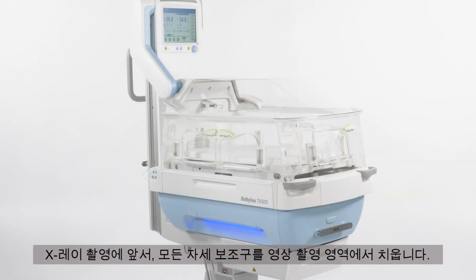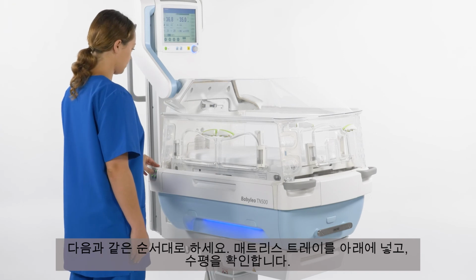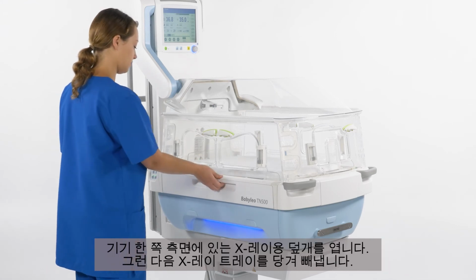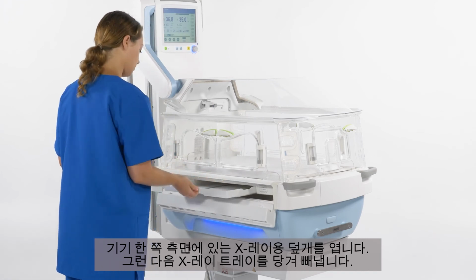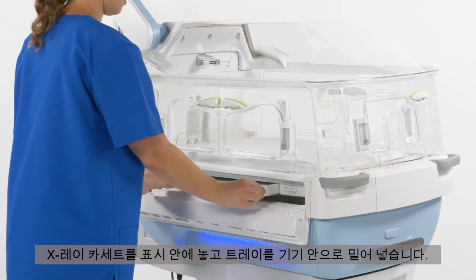Prior to taking the X-ray, remove all positioning aids from the imaging area. The positioning aids may absorb X-rays and adversely affect the image quality. The following steps are required. Bring the mattress tray into the bottom position and ensure it is horizontal. Open the flap for the X-ray tray on one side of the device. Afterwards, pull the X-ray tray out. Position the X-ray cassette within the markings and push the X-ray tray into the device.